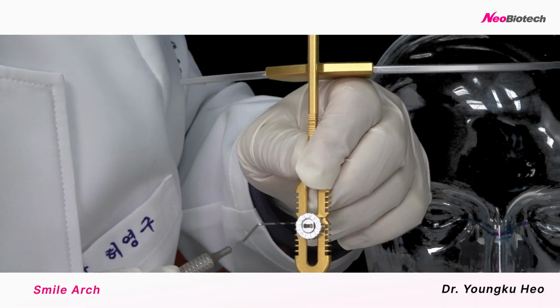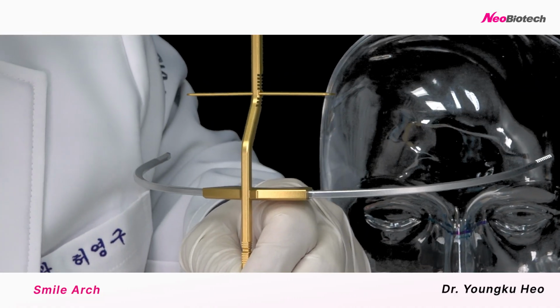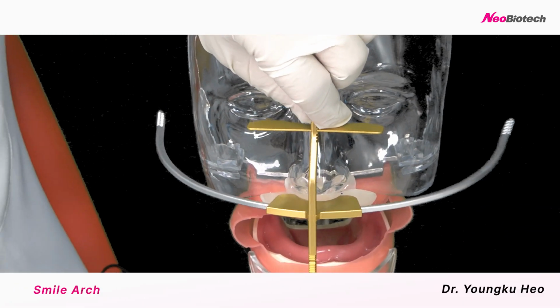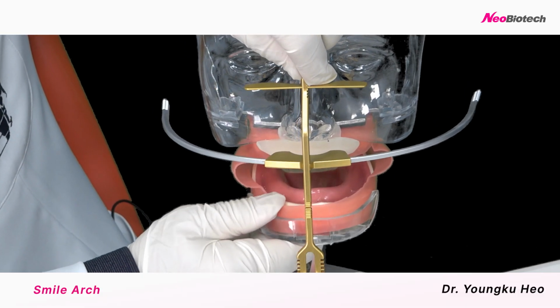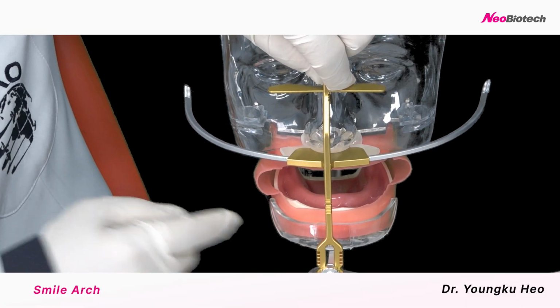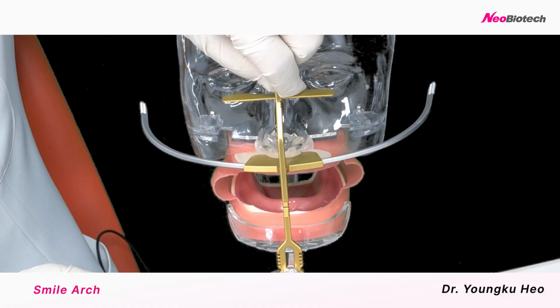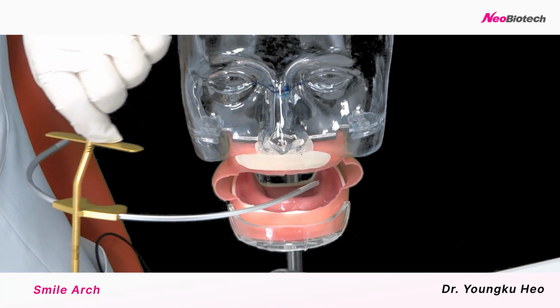So we can just use this point, okay, we can move, but actually this is the right golden proportion of the mandible position, the VDO position. Okay, so we can use this as a standard, as a reference. And also you can see all the patient's mouth. You can determine the vertical dimension by yourself, but this information you can use as a reference. All right.